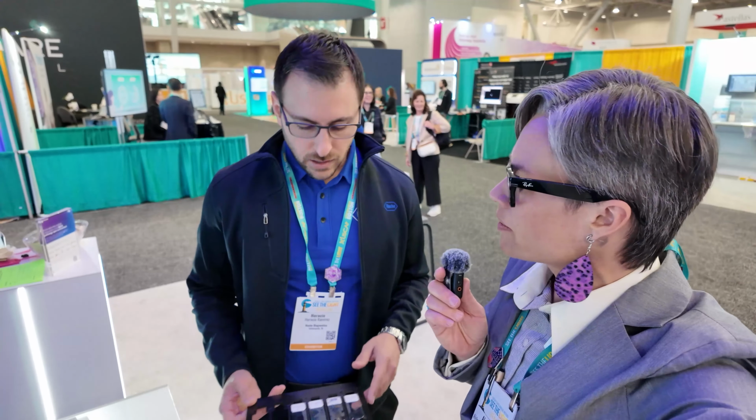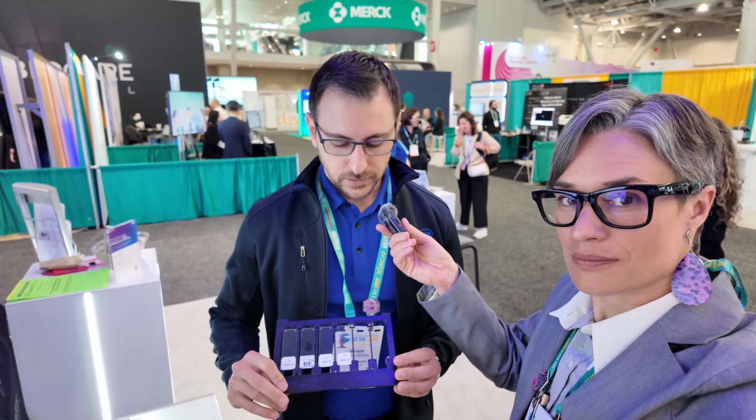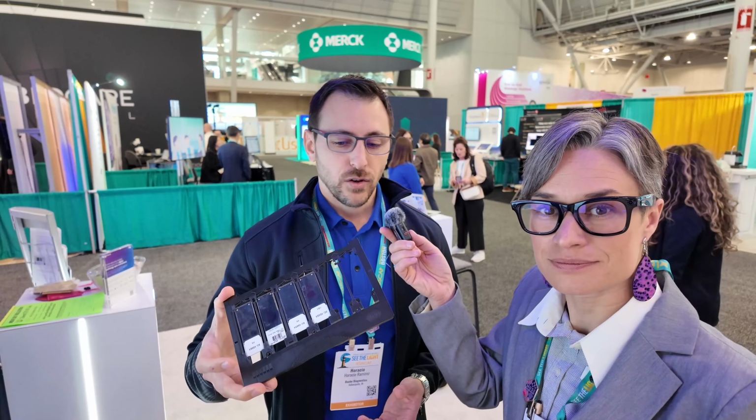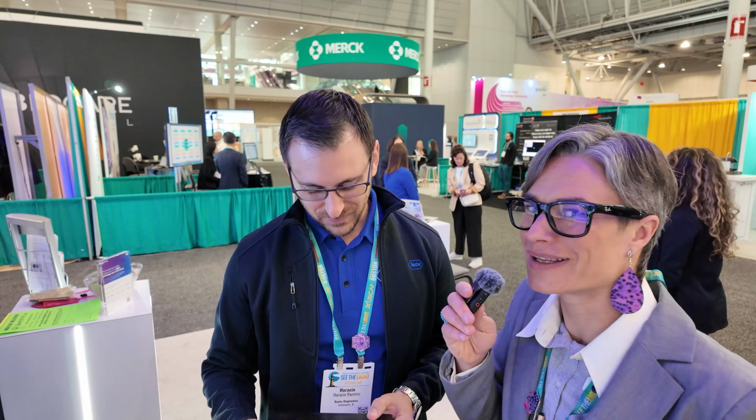Anything else we need to know about the scanner? The one thing I want to mention has to do with the tray-based system. This was a decision that the company made. The scanner doesn't really handle individual slides, so it's somewhat permissive on what you can put on. It's a piece of electronics, right? You want to have it clean, without fluids and glue and different things that come into creating the slide.